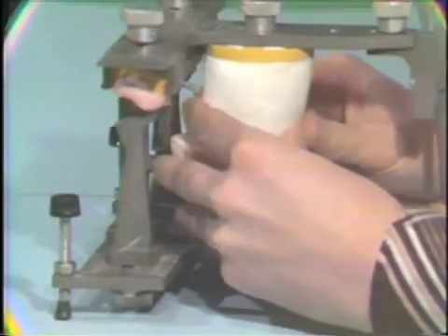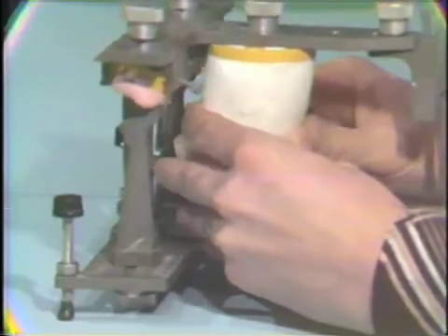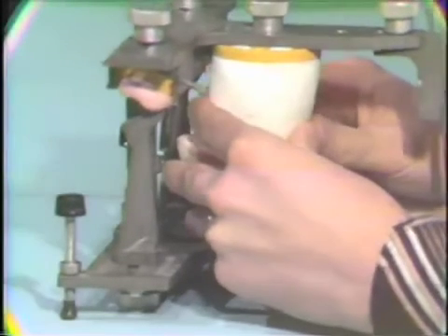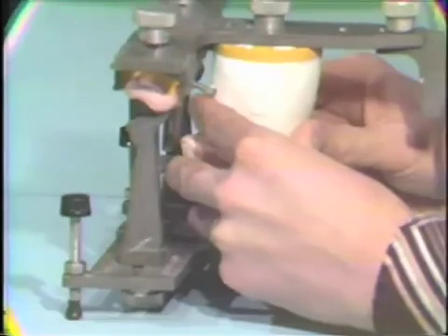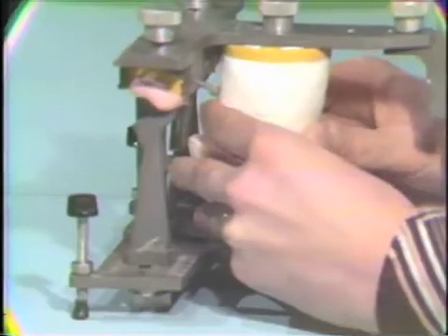Now, it should be noted that here is another potential for error in this system. As you can see, it's very difficult to visualize while doing this whether or not our cutter studs are in fact in complete contact with our stereographic recordings. We're only kind of guessing that in fact that's the case.